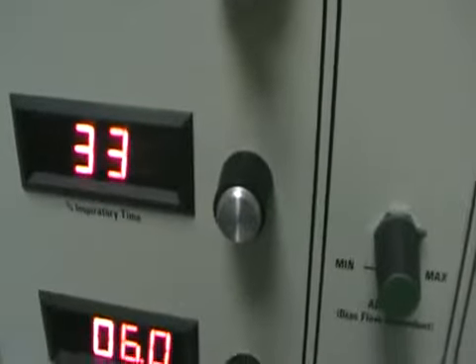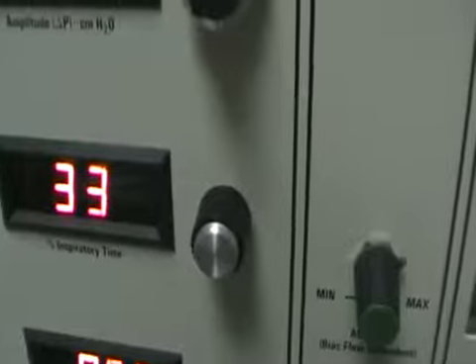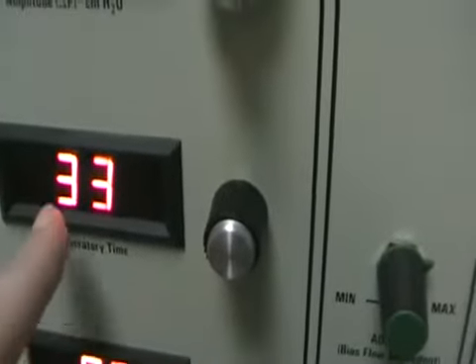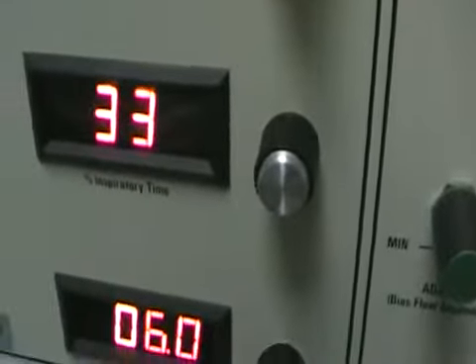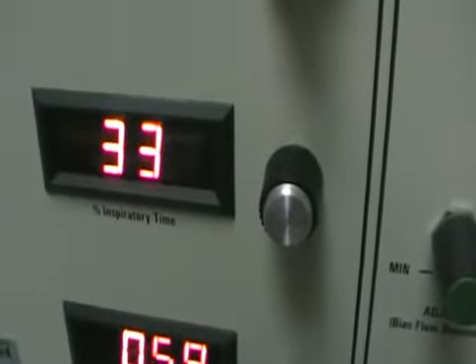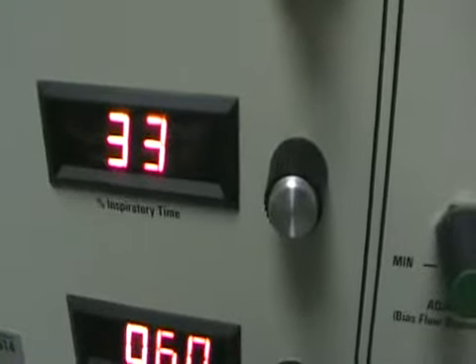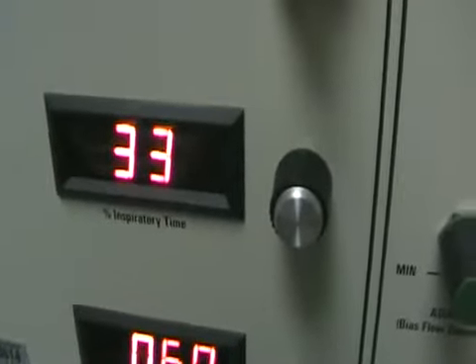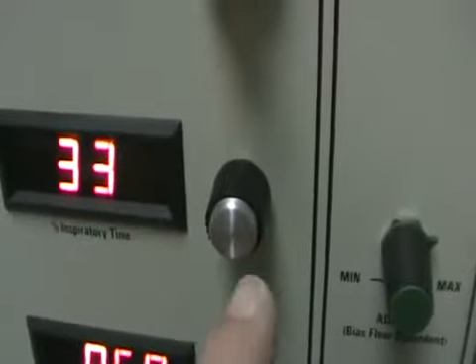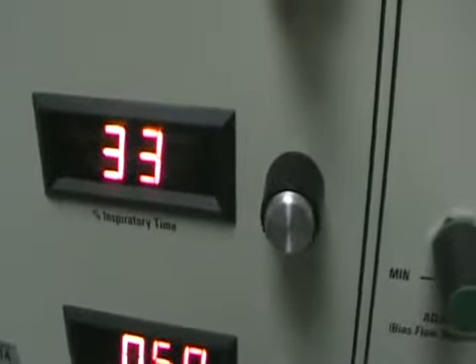The final setting is the inspiratory time. Typically we start at 33%, and we adjust it here. What this tells us is that we move the piston forward 33% of the cycle time, and then we actively pull the piston back 67% of the time. If we wanted to increase our ventilation, we would increase our inspiratory time — that would give the piston longer to displace air.